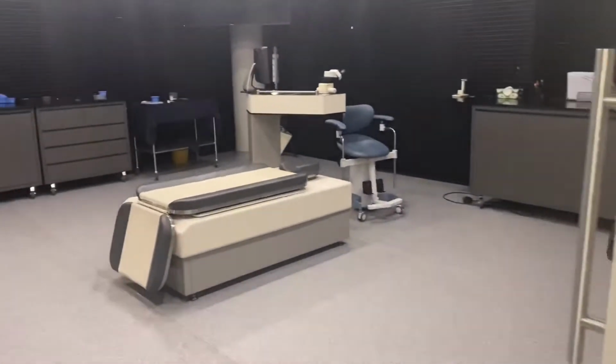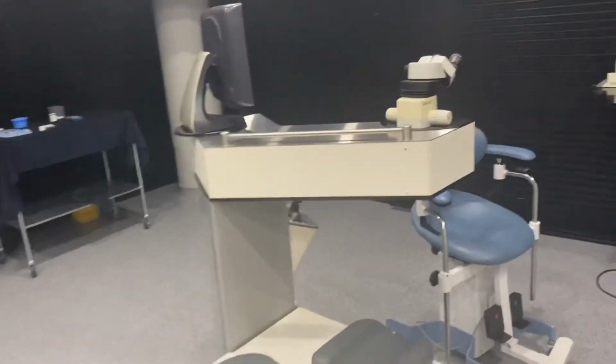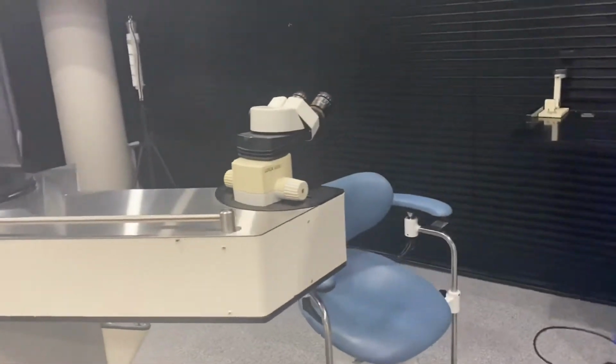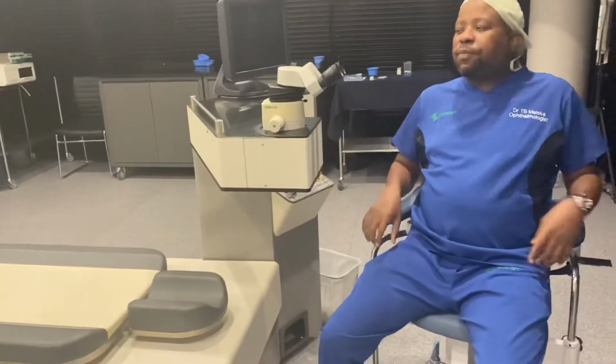All right, welcome to my laser room. This is where we do all the laser procedures, LASIK and PRK procedures.